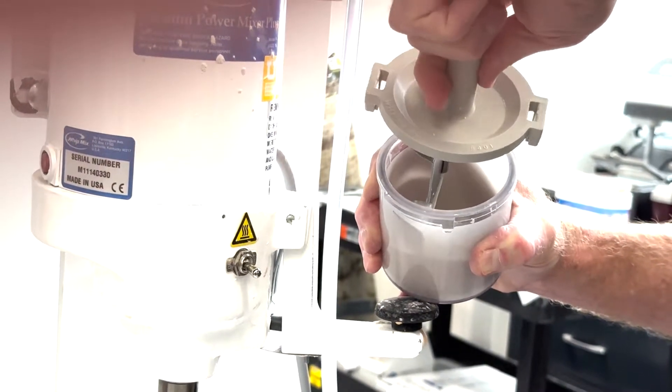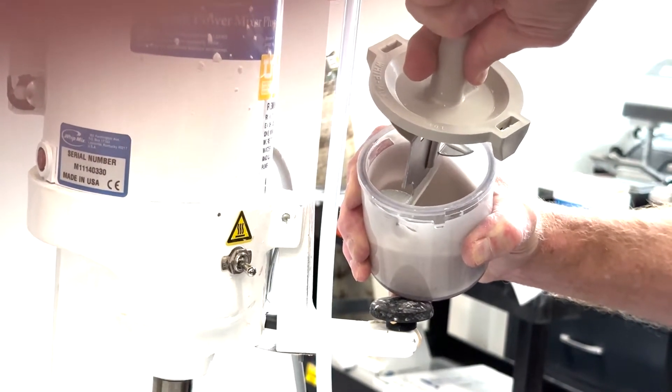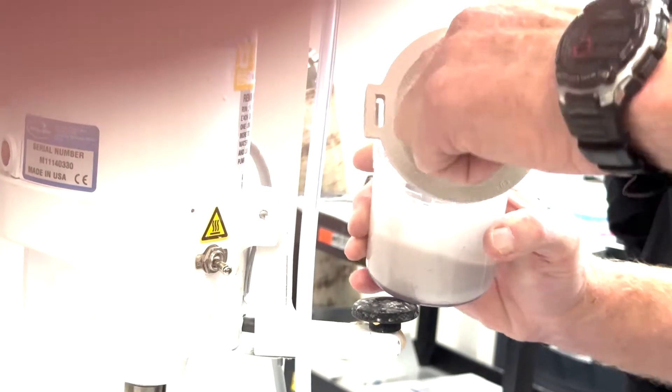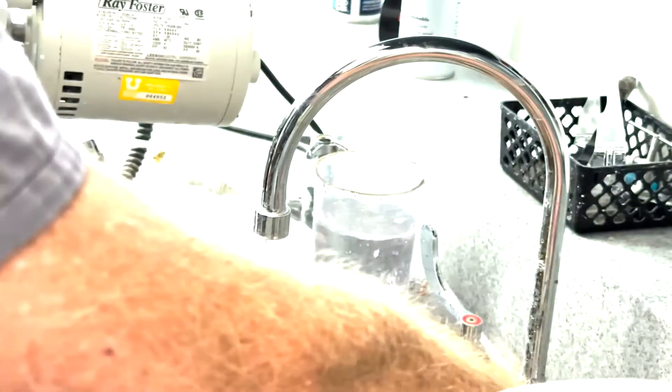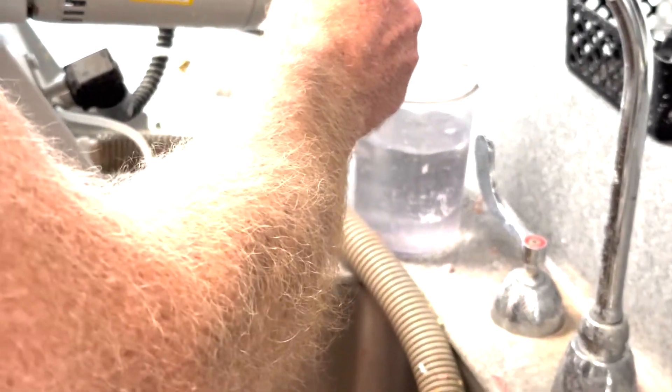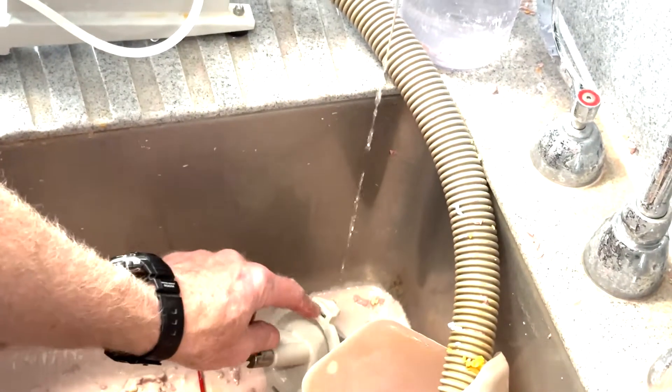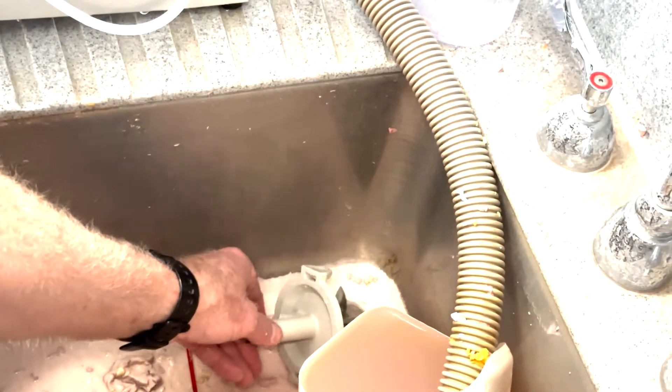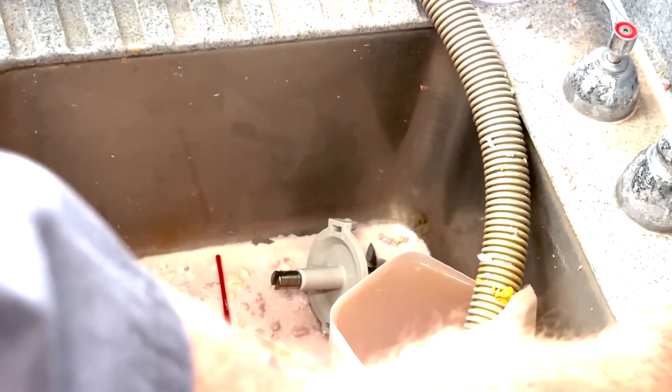I just kind of try to vibrate as much off the tines as you can, you know. And then if you can, you can take and just put this under a little drip. Boy, we've got a lot of stone problems here. But if you can just do, I mean, literally just a drizzle, and if you hit right at the edge of that like that... it's almost too much, but yeah, like that. Those tines will almost be clean by the time you're done. If you can get the magic spot there. Something like that.